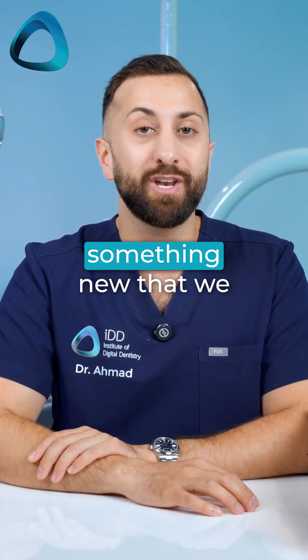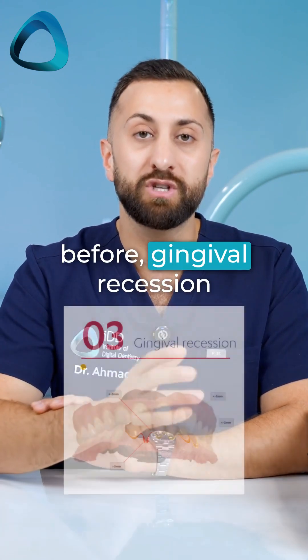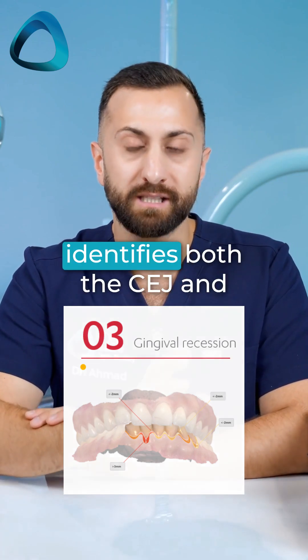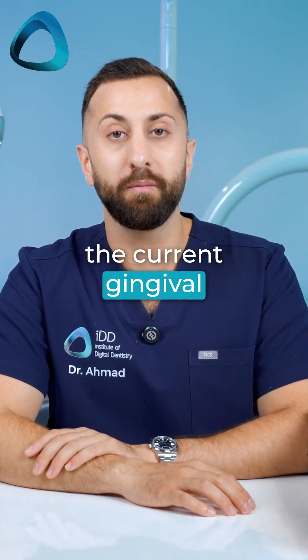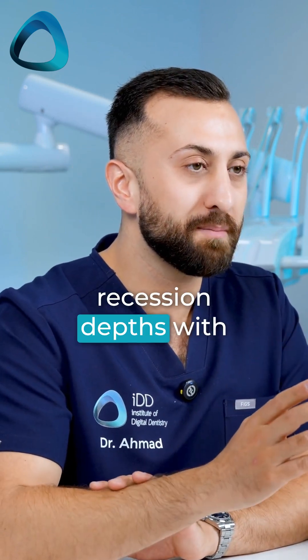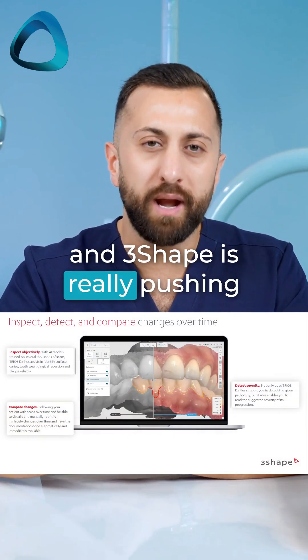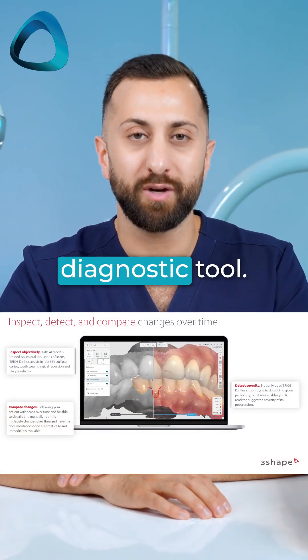Thirdly, and this is something new that we haven't seen in a scanner before: gingival recession measurement. The scanner automatically identifies both the CEJ and the current gingival margin, and it calculates recession depths with precise measurements. It is pretty cool to see. Three Shape is really pushing the Trios 6 as a true diagnostic tool.